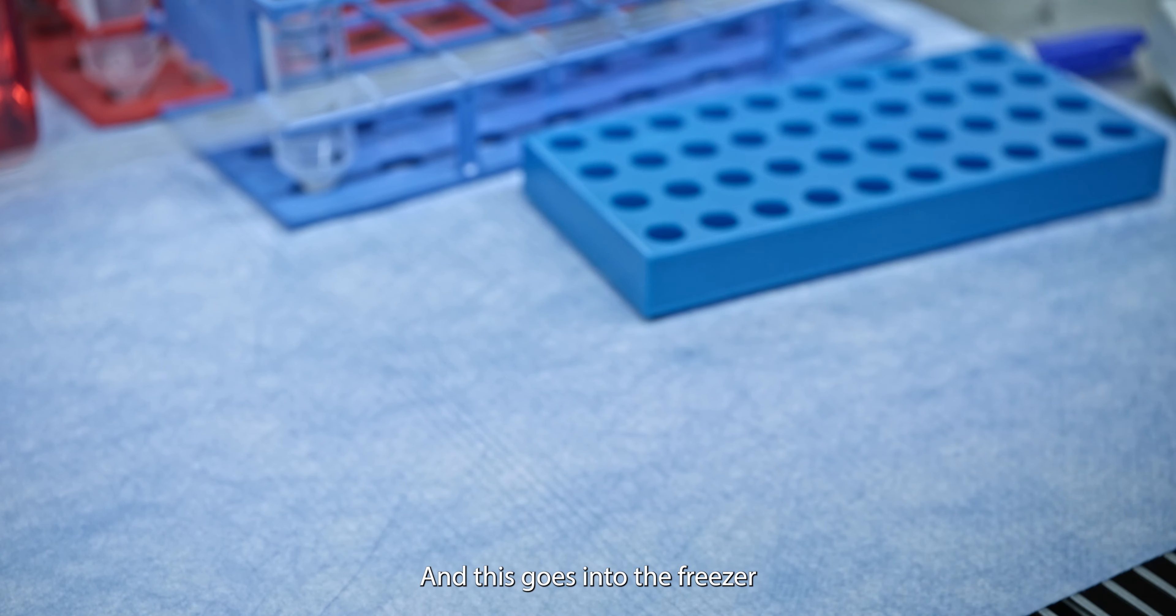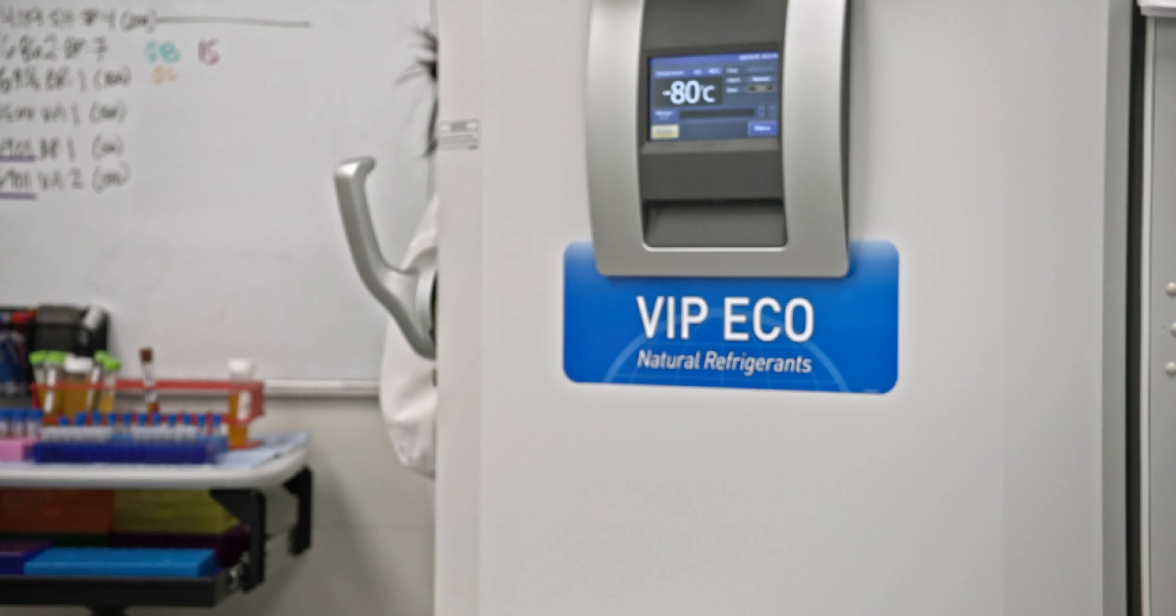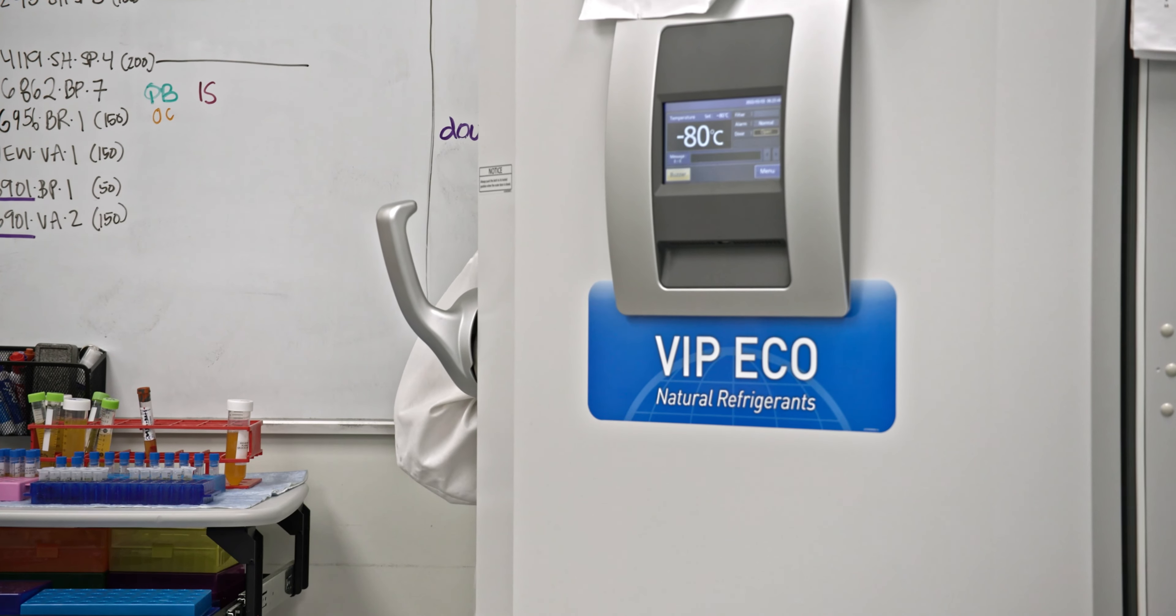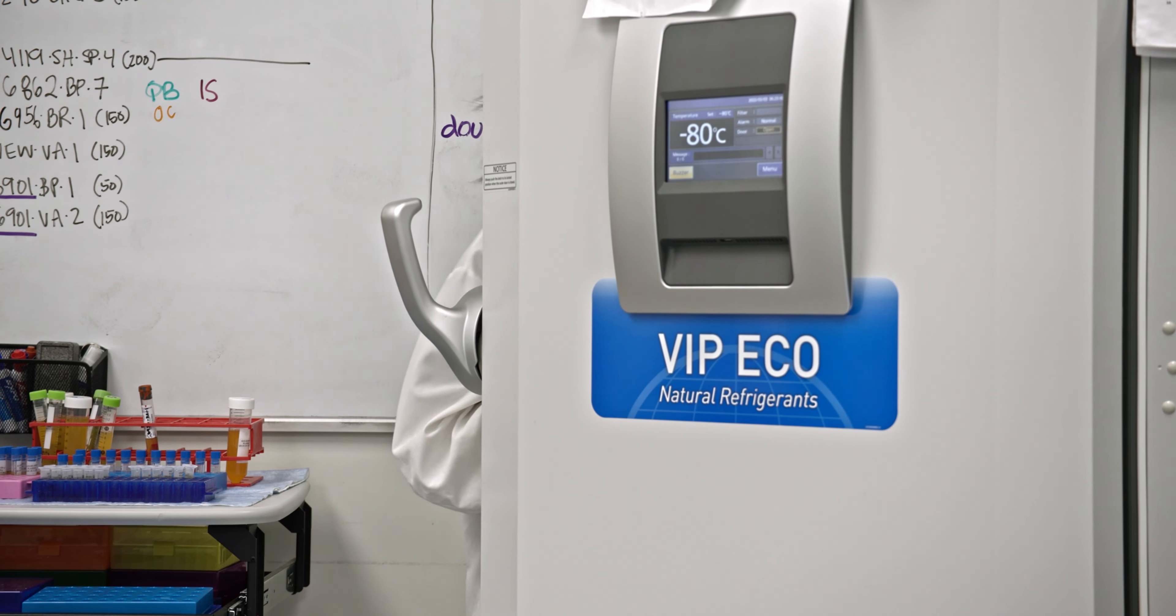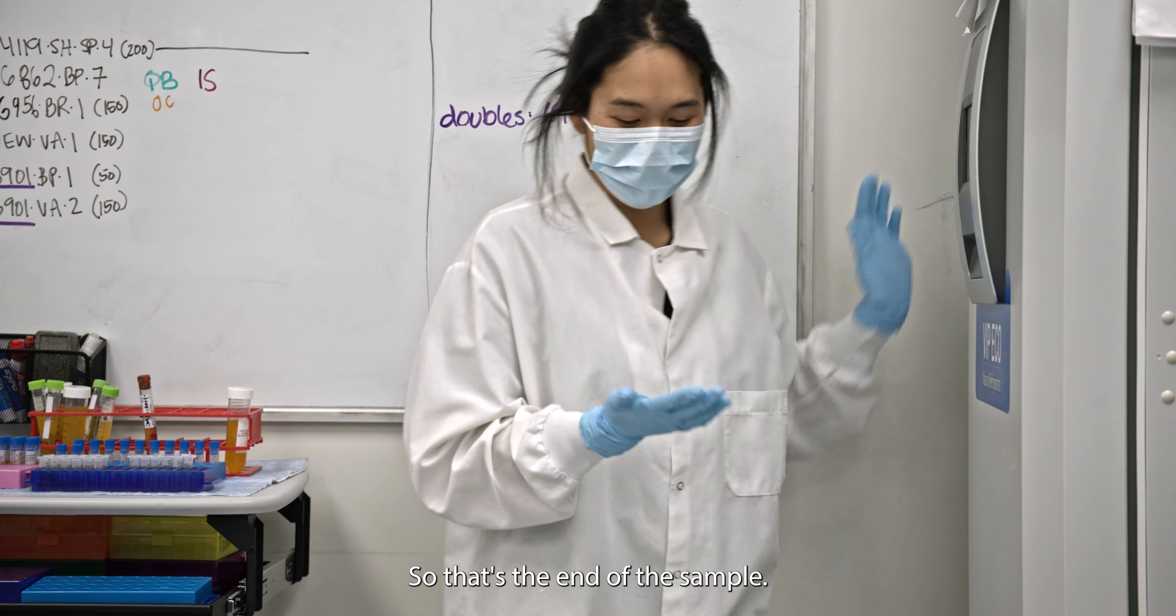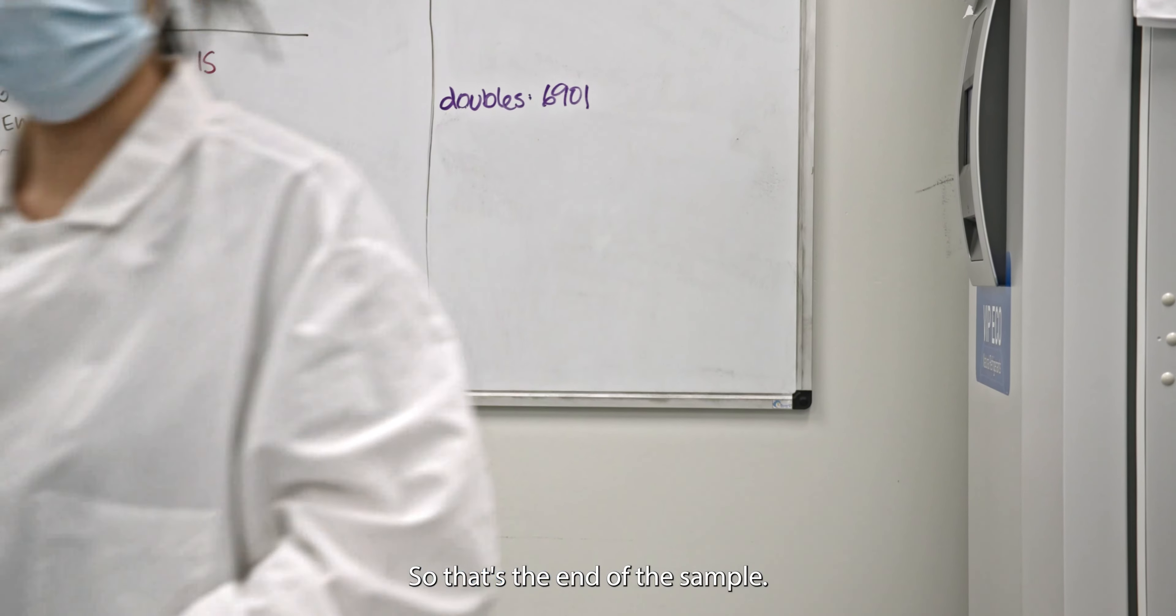Alright, and this goes into the freezer. Alright, so that's the end of the sample.